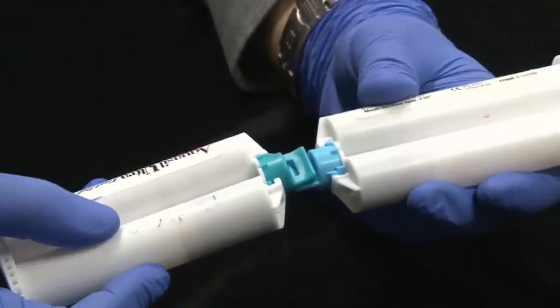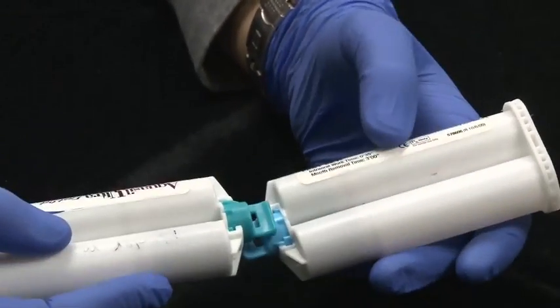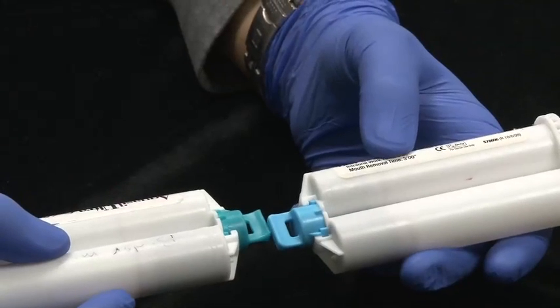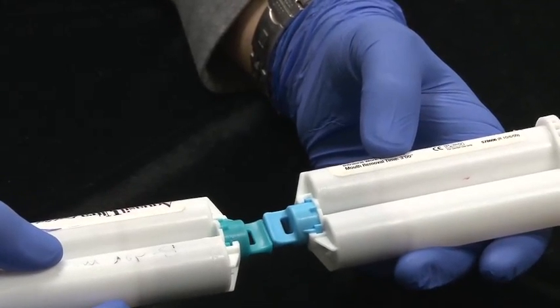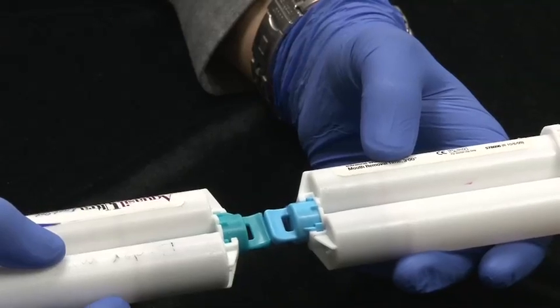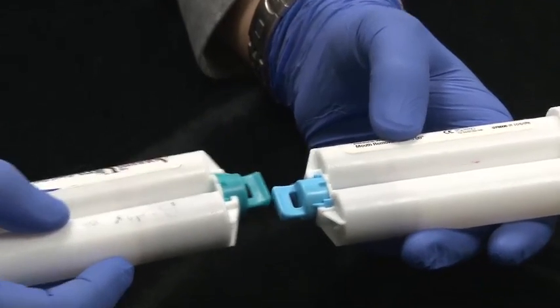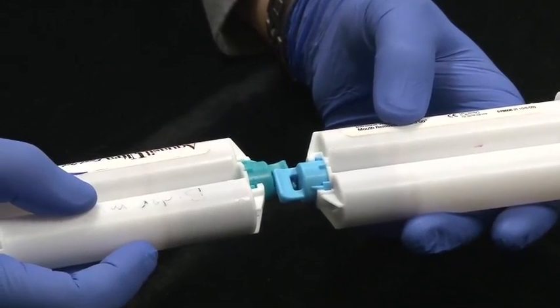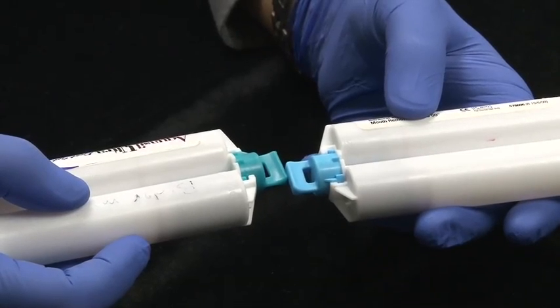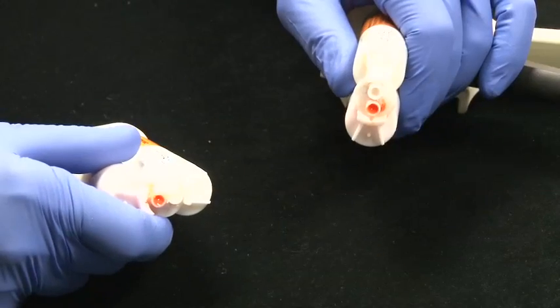You can see that part of the problem is that the labels didn't go on, the manufacturing process wasn't controlled, and so they don't end up with material on the same side in all their syringes. You will not be able to switch over using the Lock and Reload in this kind of a situation.